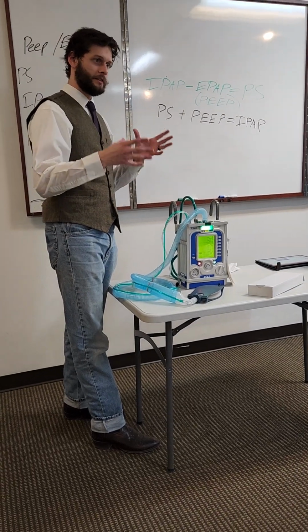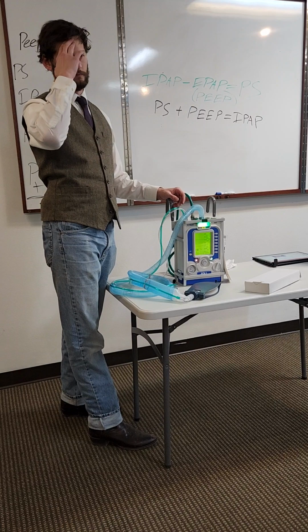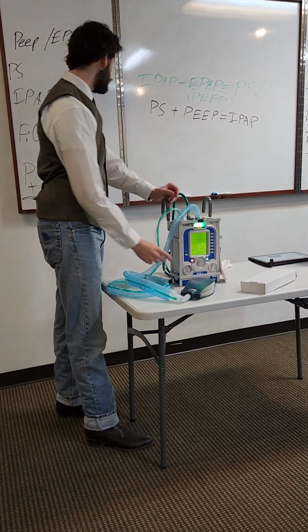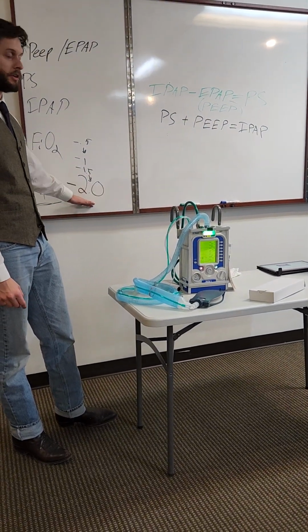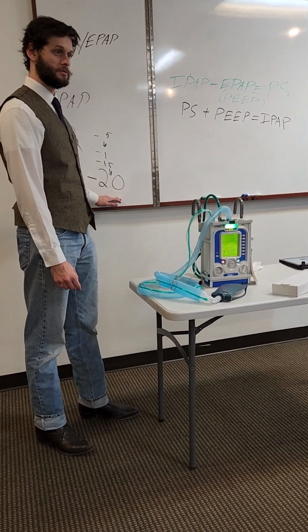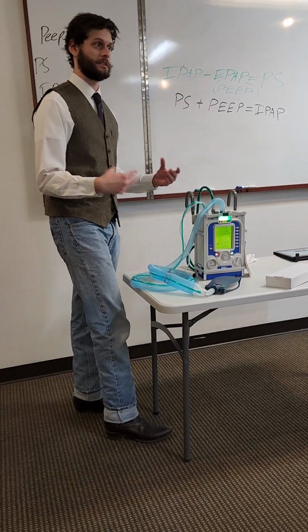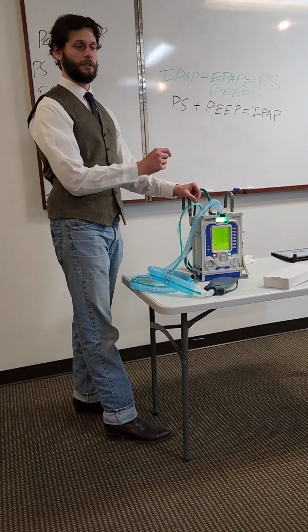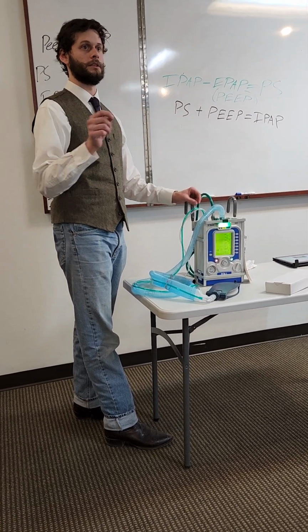So 0.5 to start, and then walk yourself up. And it moves up in 0.5 increments. So 2 might actually be ideal for the patient. But starting everybody at 2, you're going to have people who can't draw on that, and you just are suffocating them until the apnea alarm kicks in. And then you're forcibly ventilating somebody who just needs CPAP. So getting to that pressure trigger is probably the most key part of the entire vent.